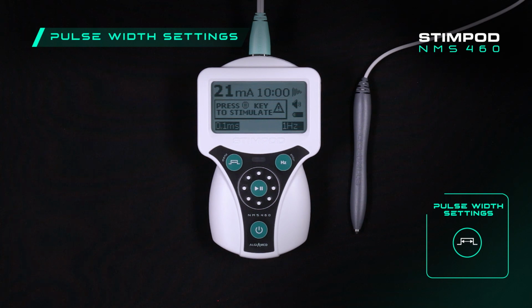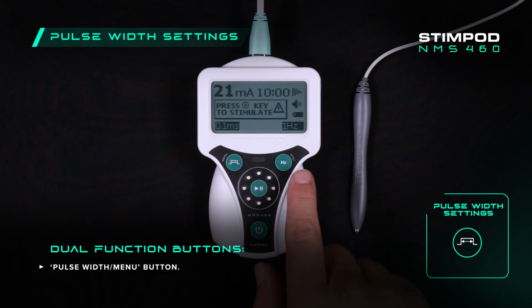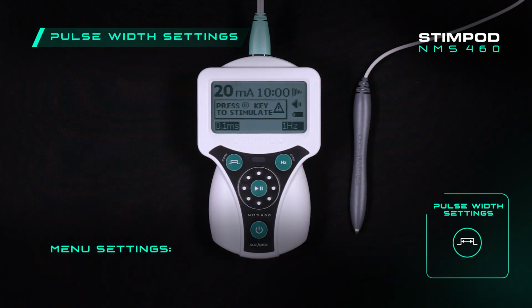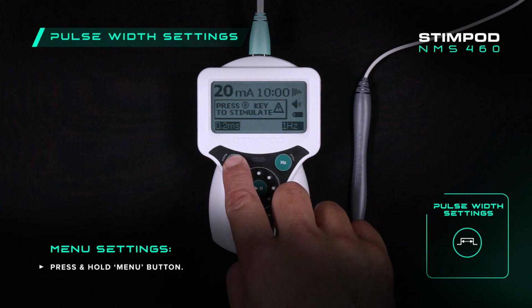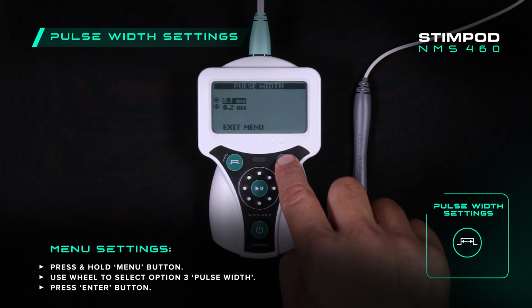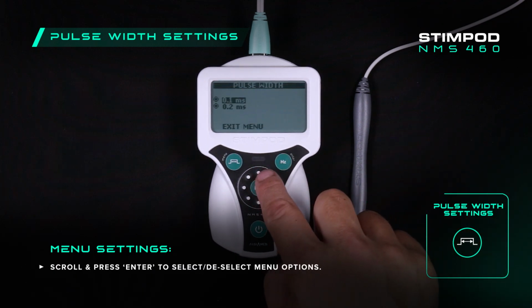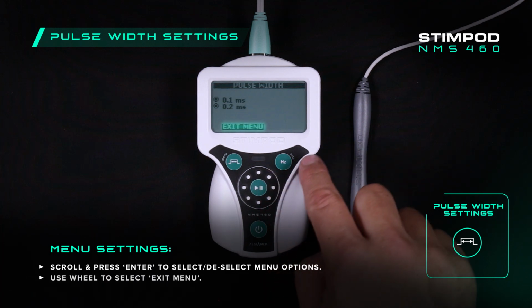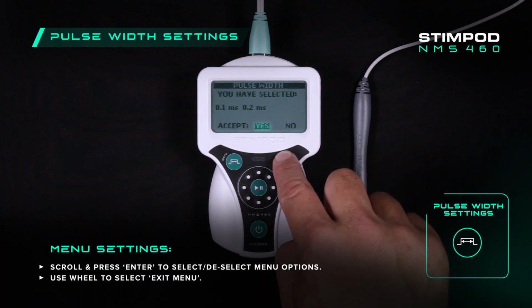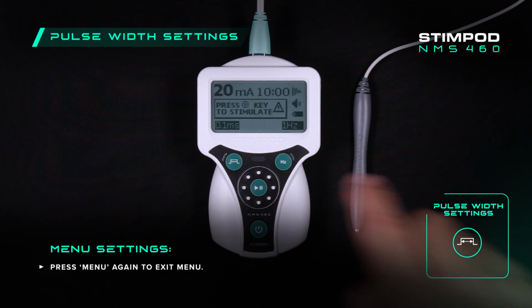To do this, firstly note the dual functionality of the pulse width menu button, as well as the Hertz enter button. To access the menu, press and hold the menu button and use the wheel to select option 3, pulse width. You can enable or disable each setting by pressing enter. To save the changes you've made, use the wheel to select exit menu, press enter and accept the settings. Exit the menu by pressing the menu button again.